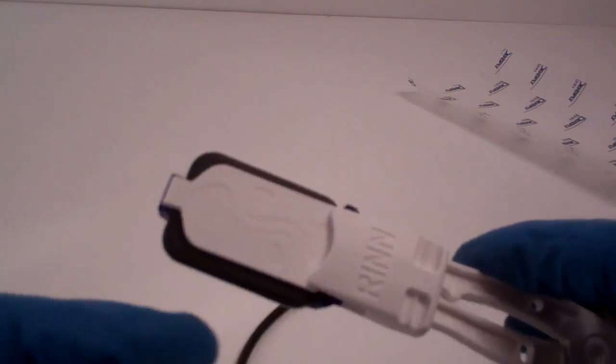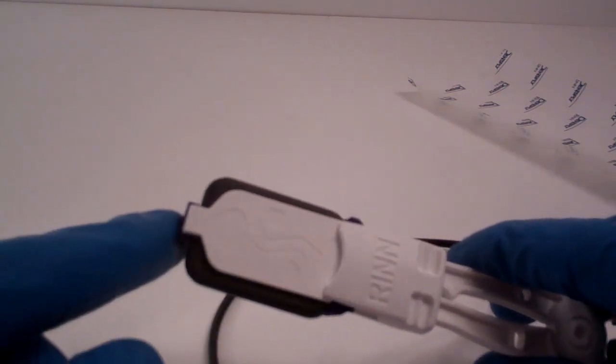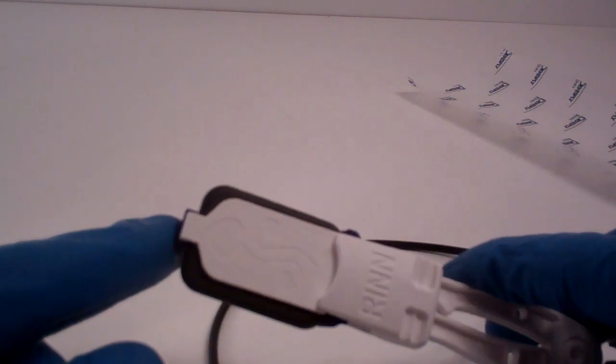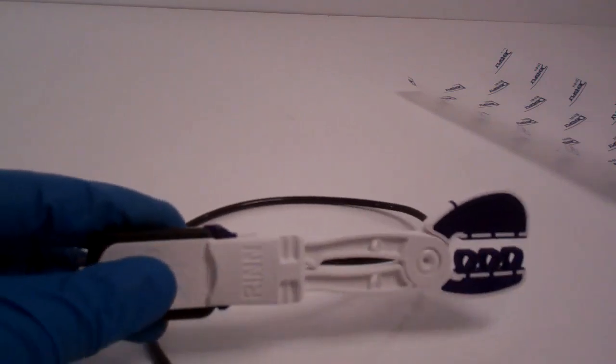And this ledge right here, if you can see that, is where you would rest the patient's incisal edges on their anterior teeth as you're taking those periapical images in the anterior. Thank you so much for watching.